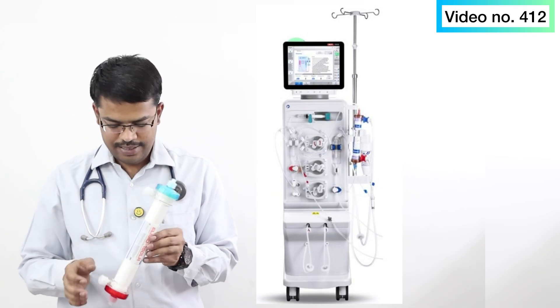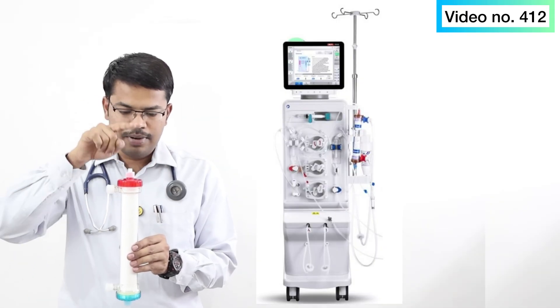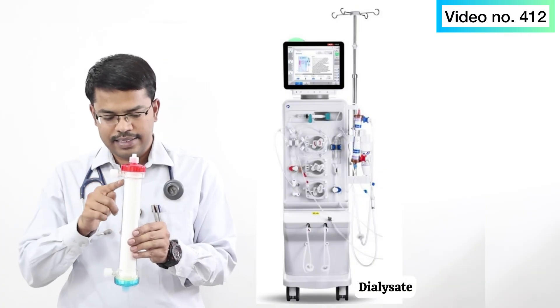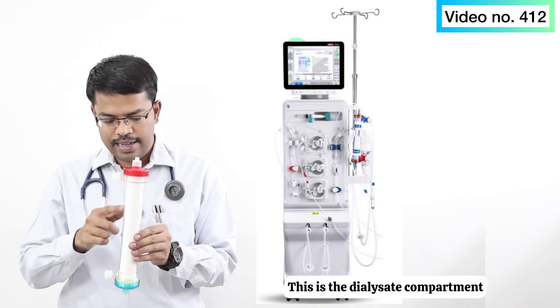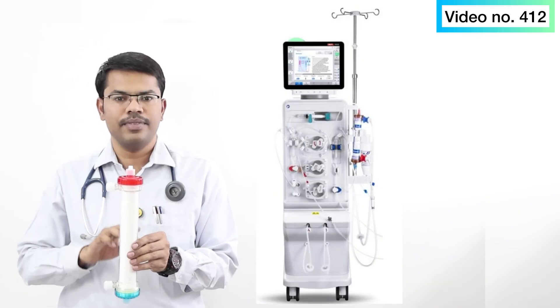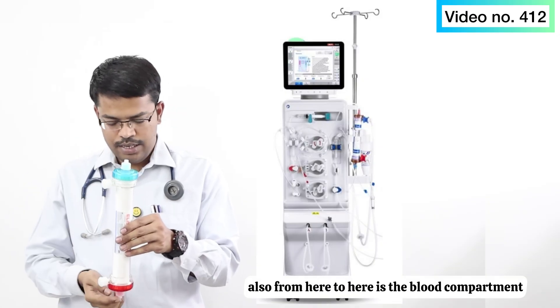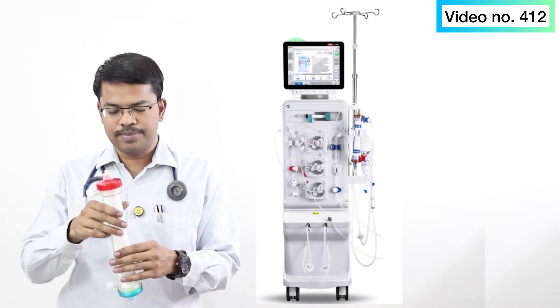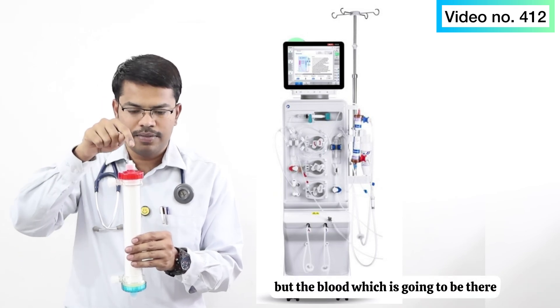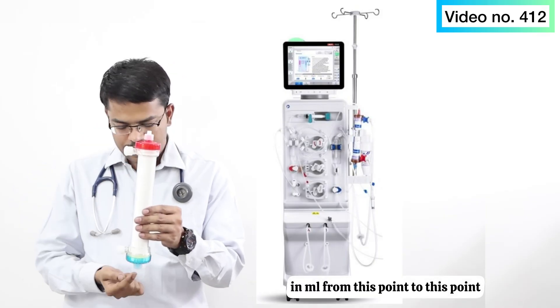Let us show this with the help of the dialyzer. Blood comes in this side, goes inside, and goes out. The dialysate revolves on this side — this is the dialysate compartment and this is the blood compartment. The amount of fluid, which is blood, from this point to this point — that represents the volume.